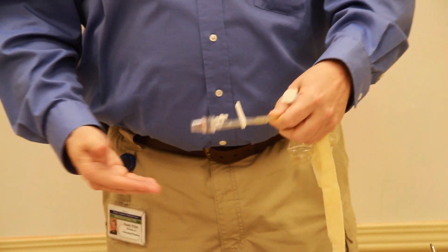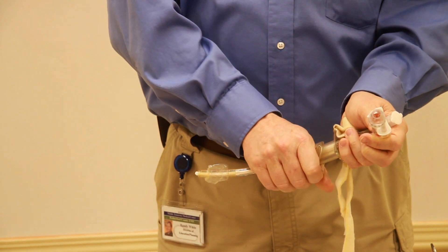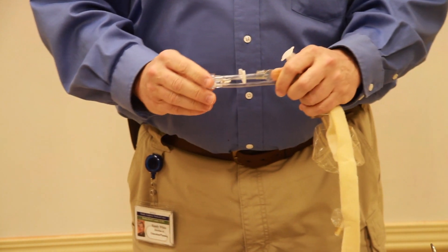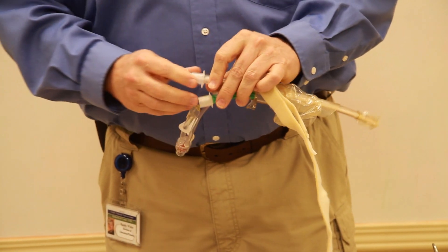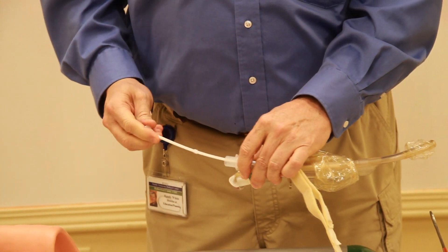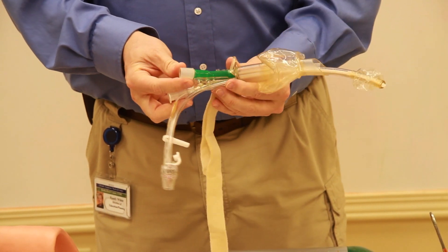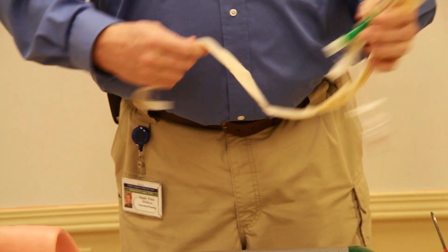When we place an advanced airway, we can leave this port closed. This port will open to deflate this balloon so we can insert an advanced airway. This airway also has a stylet which assists in getting it into the correct position.